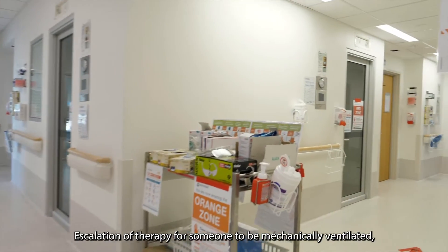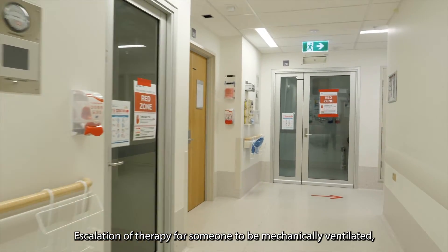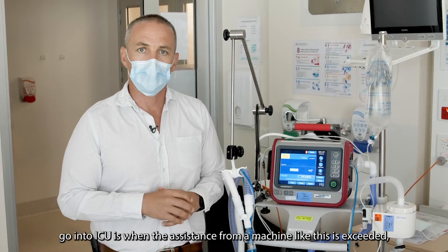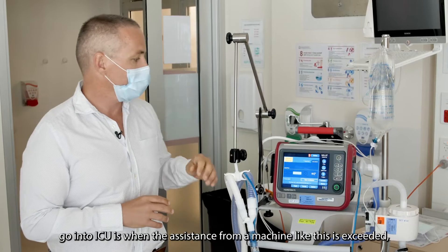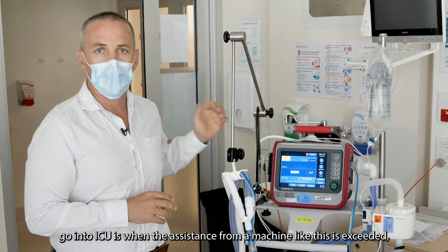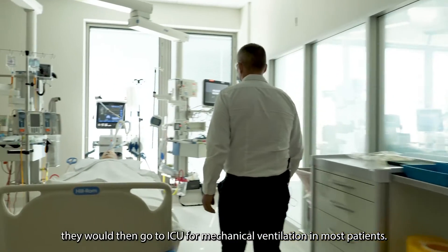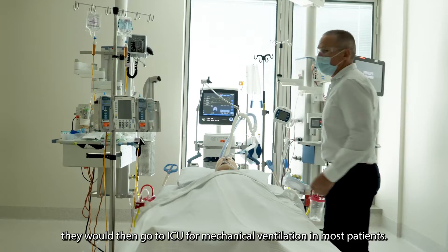Escalation of therapy for someone to be mechanically ventilated and going to ICU is when the assistance from a machine like this is exceeded. They would then go to ICU for mechanical ventilation.